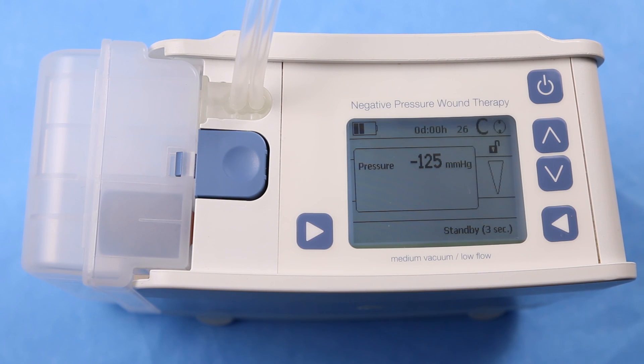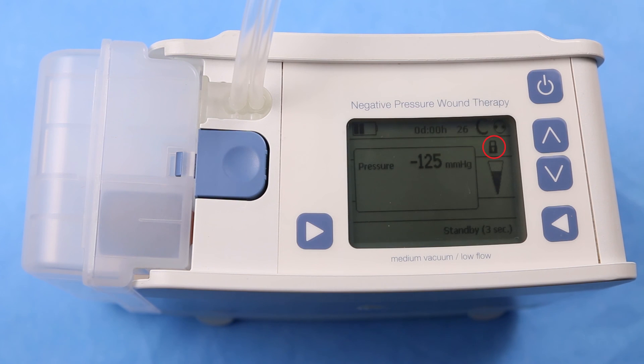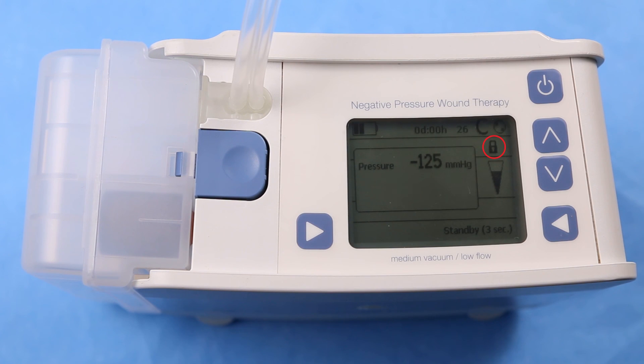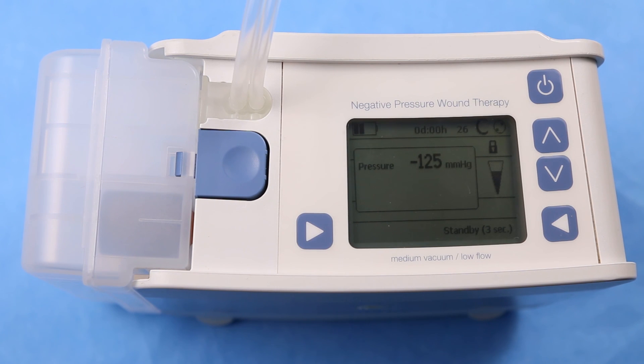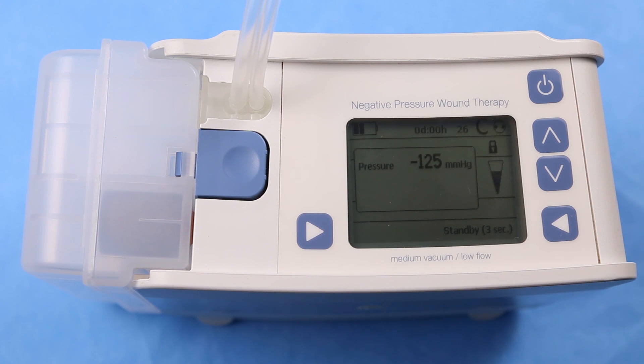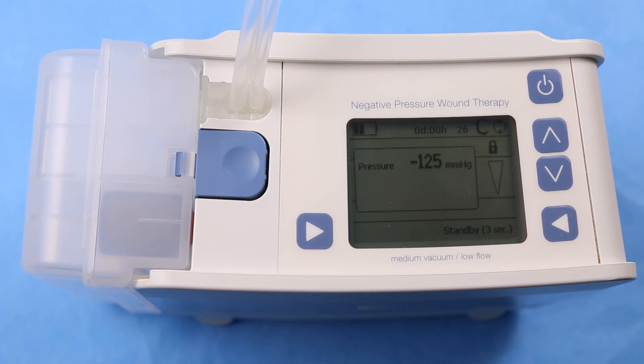One minute after the last button has been pressed, the Envia Liberty pump switches into patient mode automatically and the display is locked.